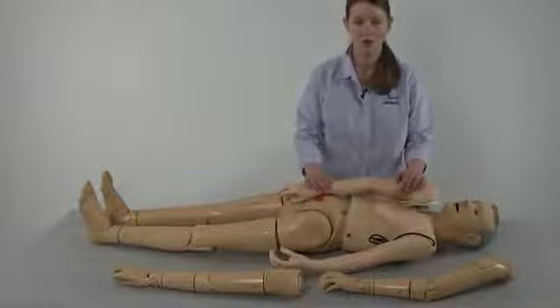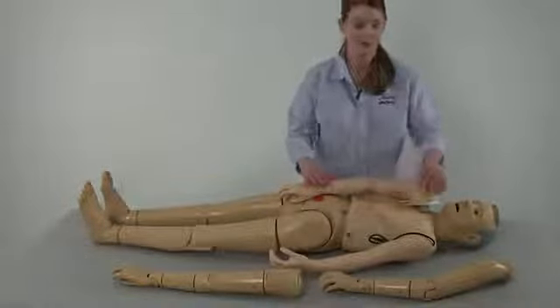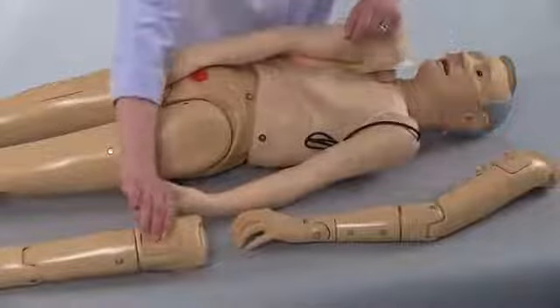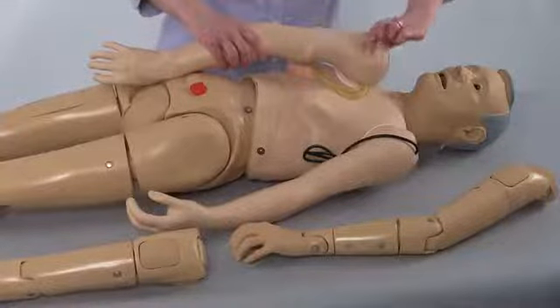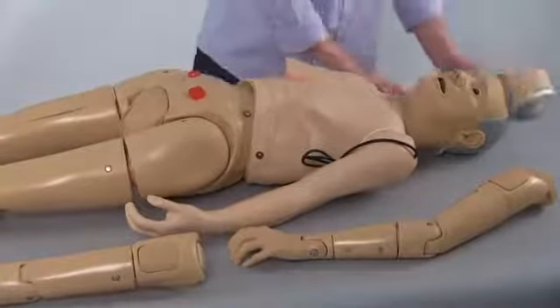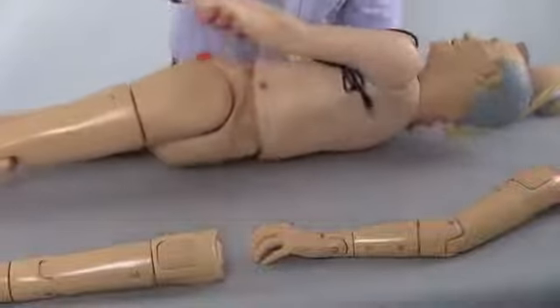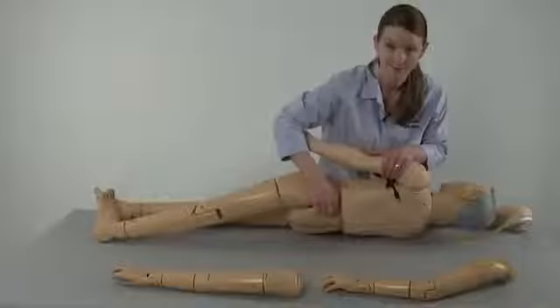All versions of the elderly appearing Jerry or young appearing Carrie have several injection sites: on the articulating arms at the shoulder, as well as on the intravenous arm at the shoulder, on the upper thigh, and a hip injection site on the lower torso.